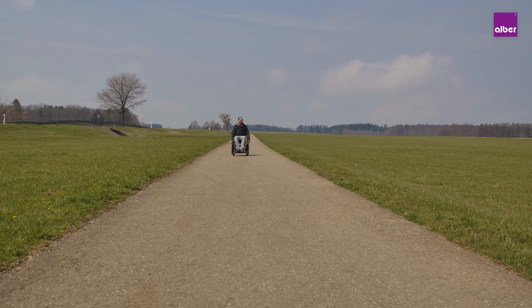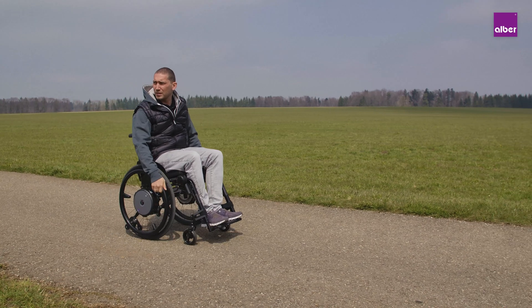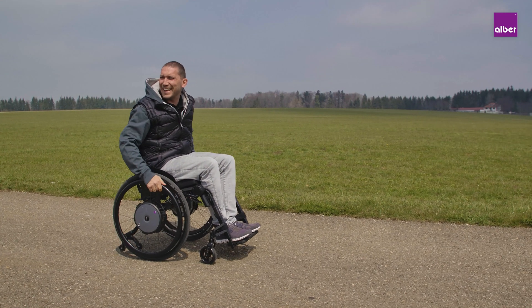If you want to drive with power assistance, press on the speed knob and the cruise mode will be deactivated.